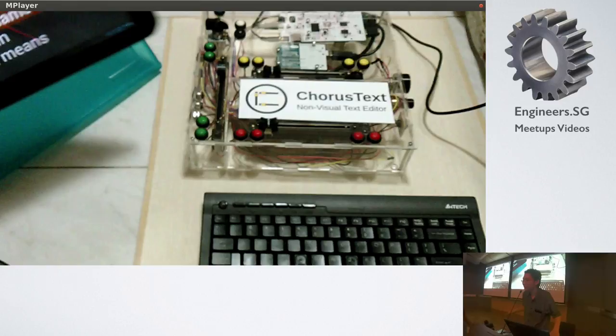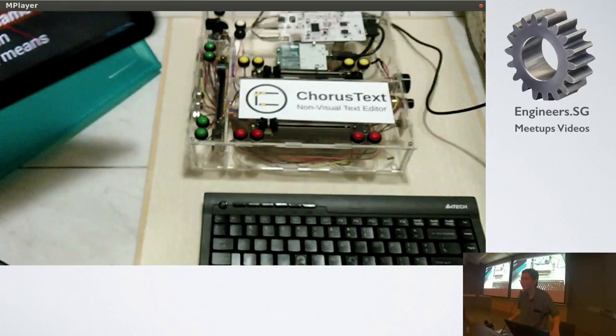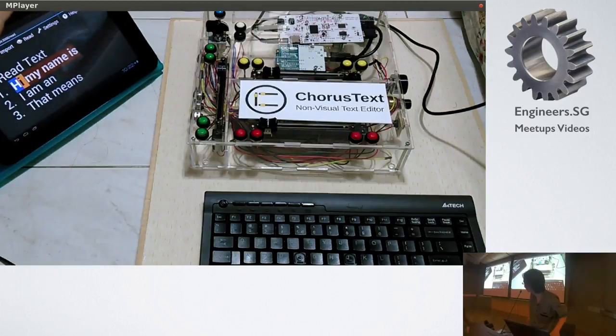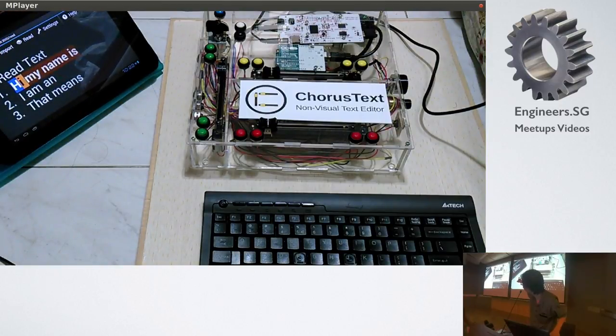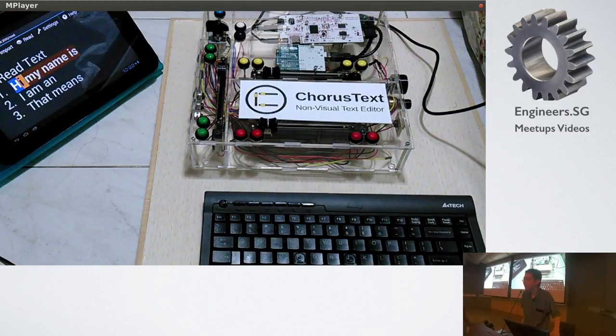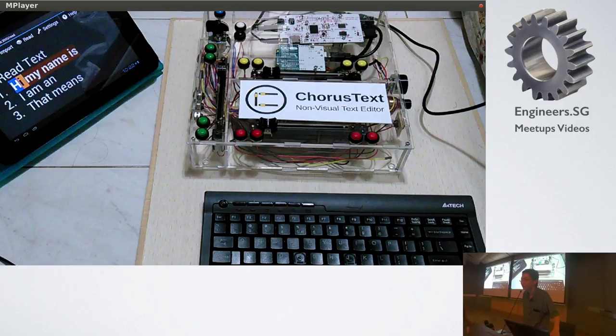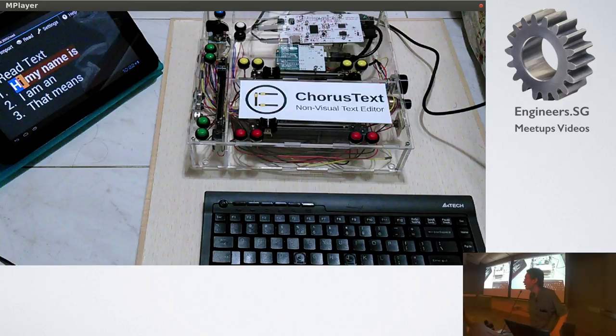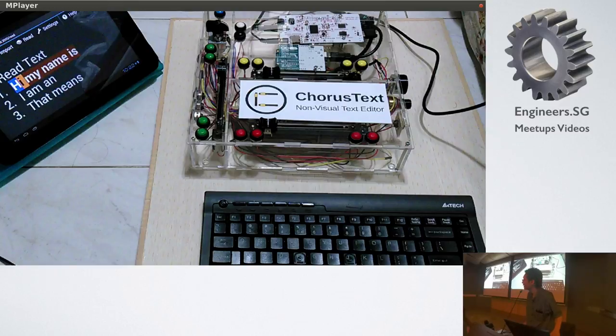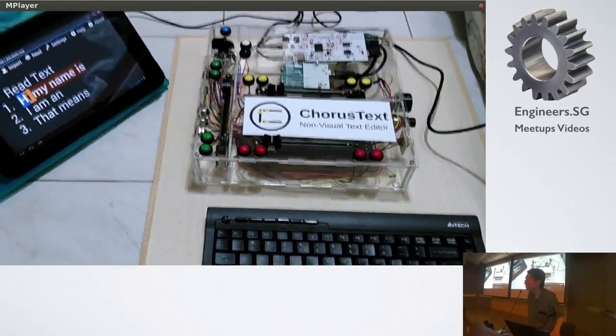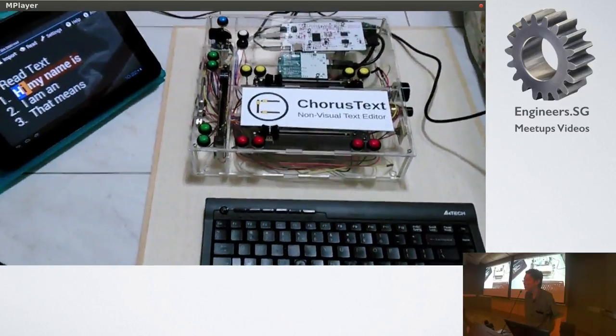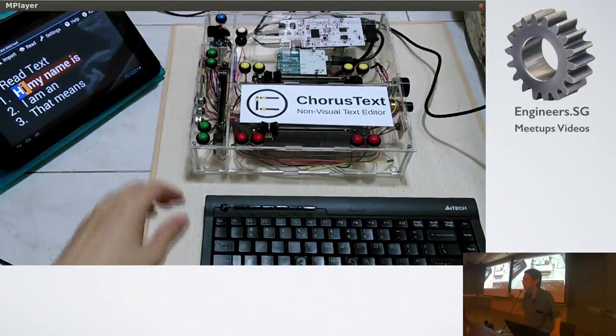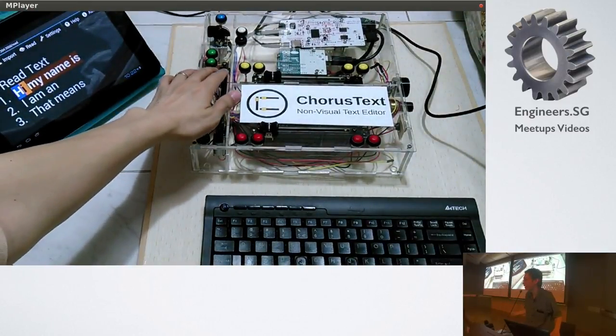So the text that is imported are incomplete sentences. And I will complete those sentences using ChorusText. So this demo is text import and at the same time text editing using ChorusText. So we can see that the text that was imported is displayed on the tablet. There's a place for the user to read an enlarged font size, enlarged version of the text. And that updates real time as the user types and as the user moves the sliders. So it will be useful for people with low vision because they can see a bit, but they need to see things big.